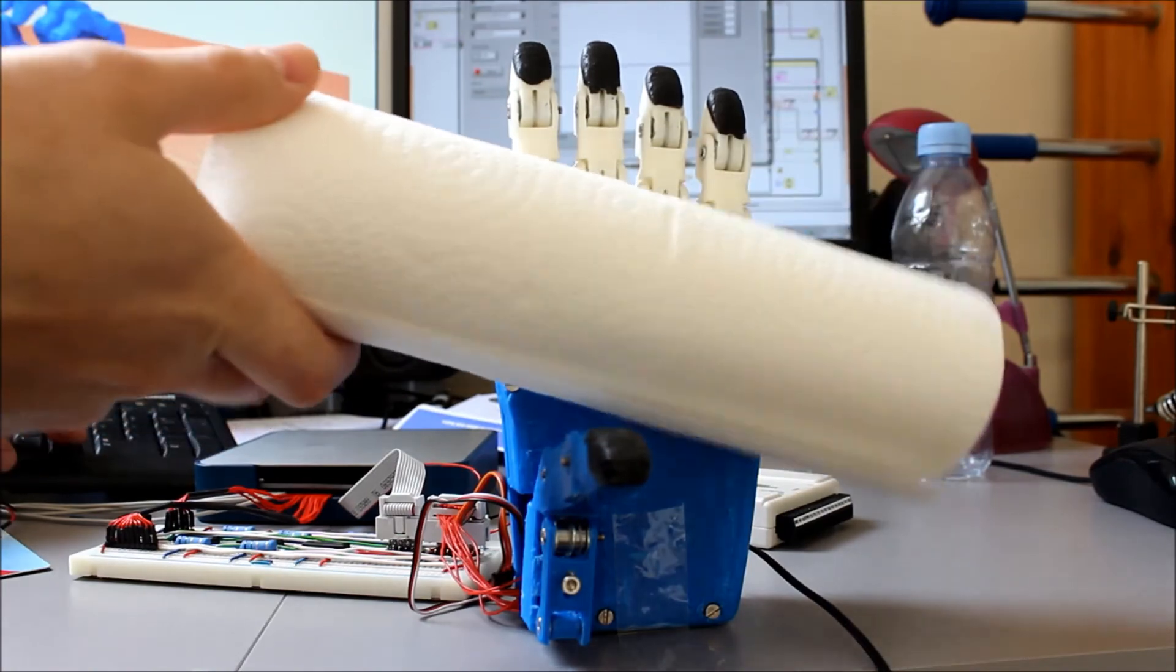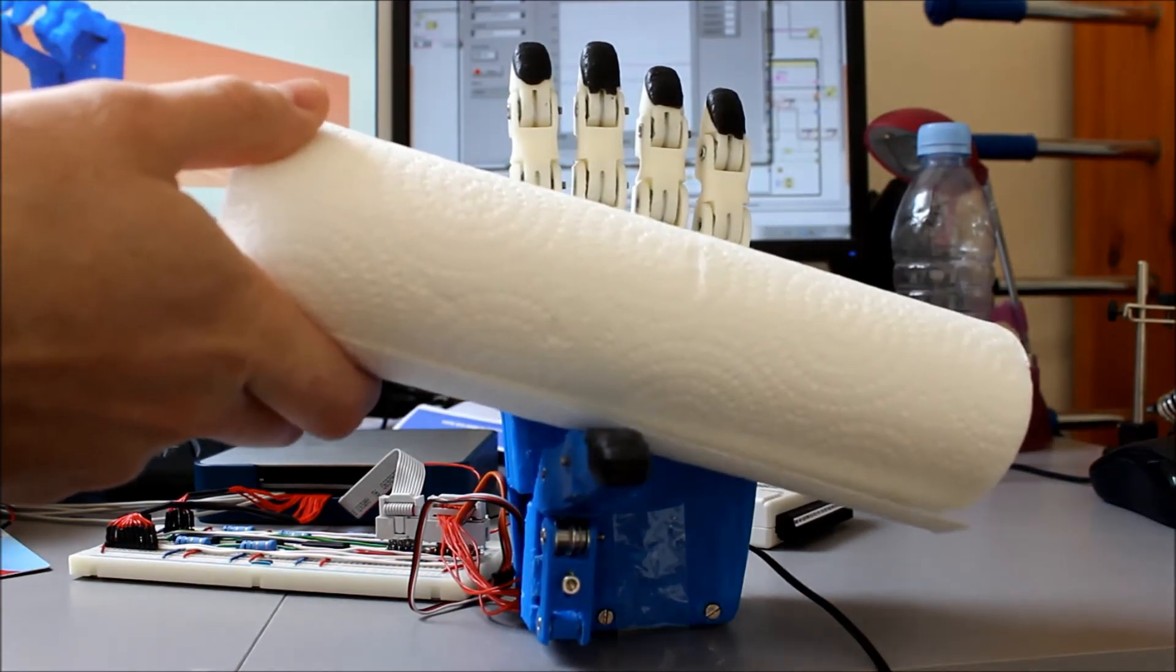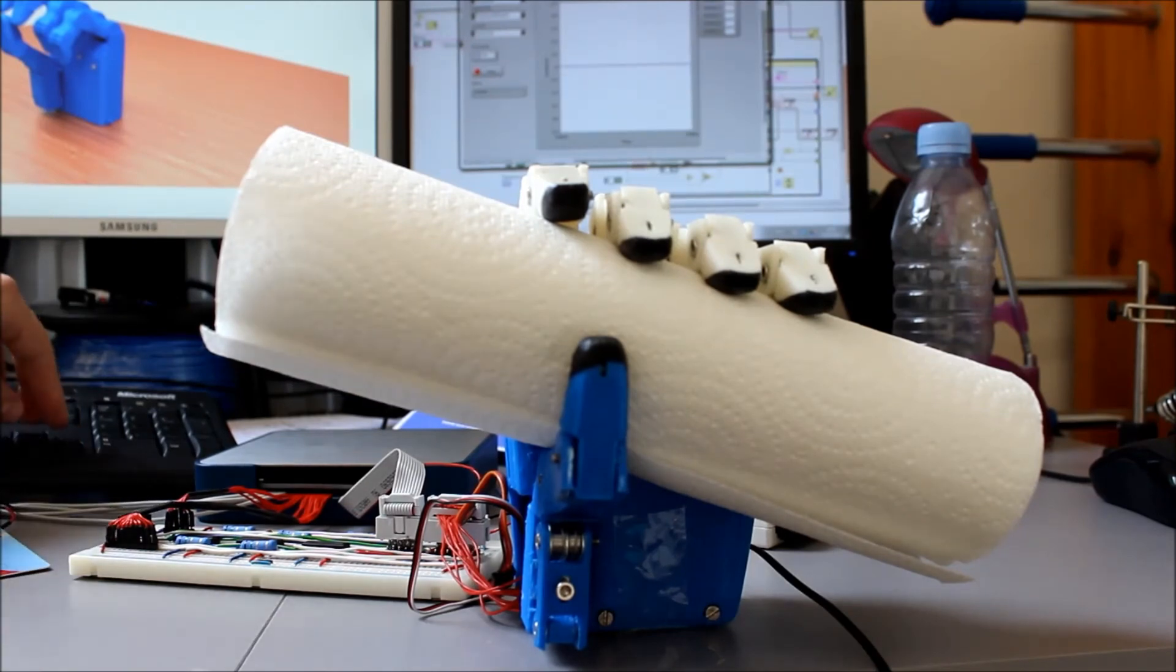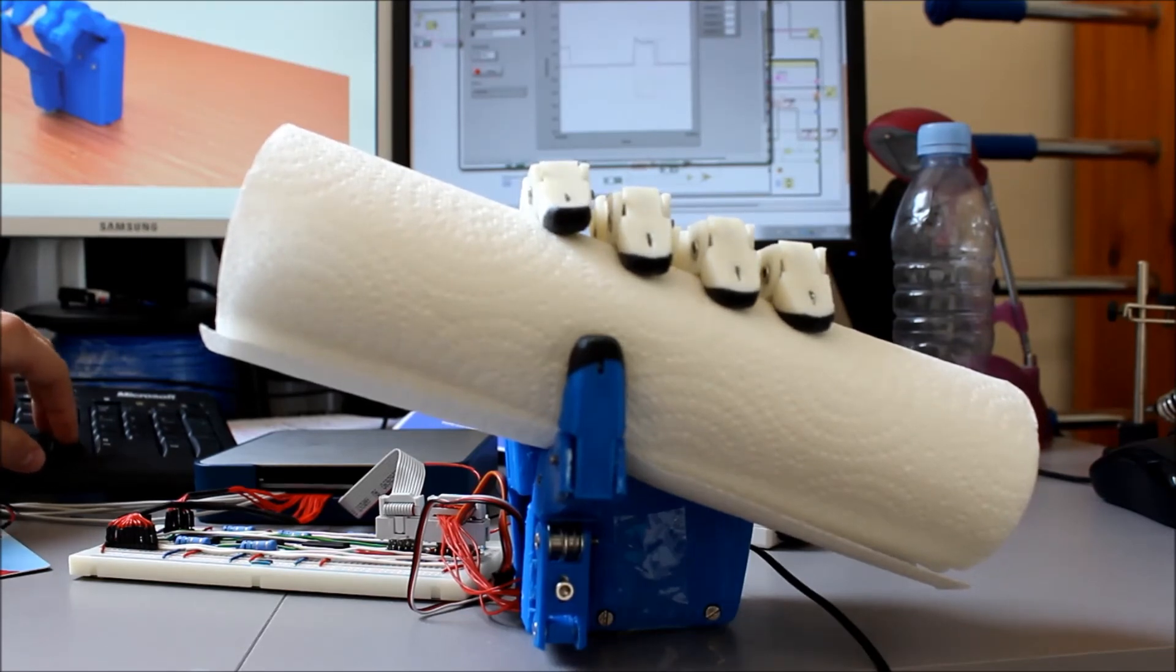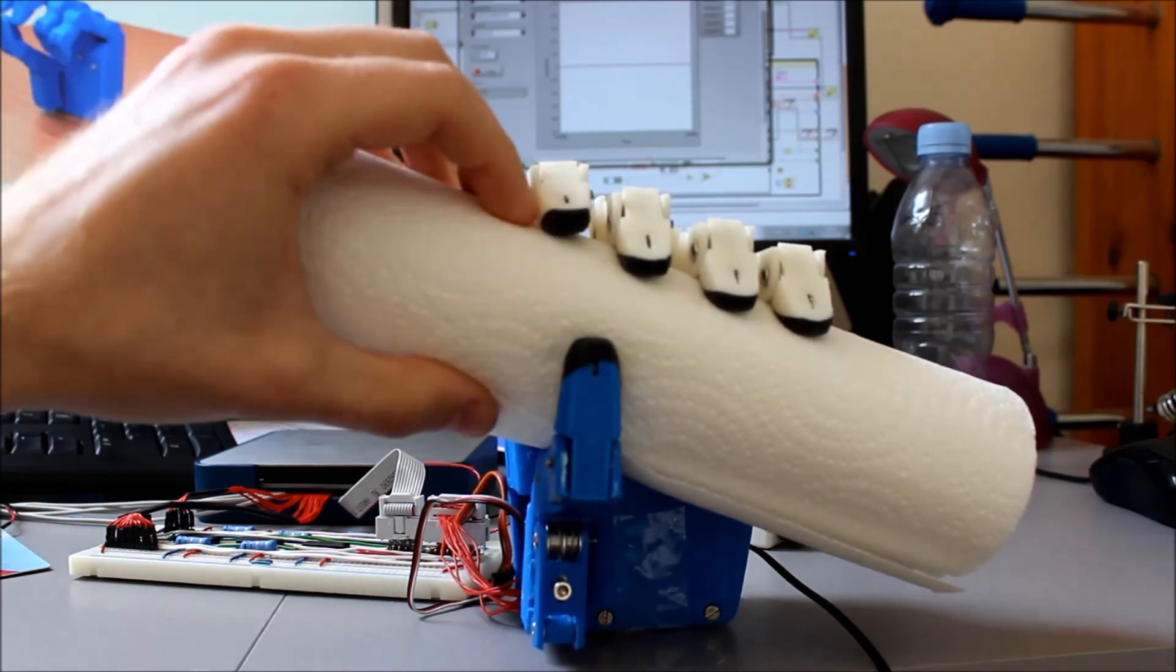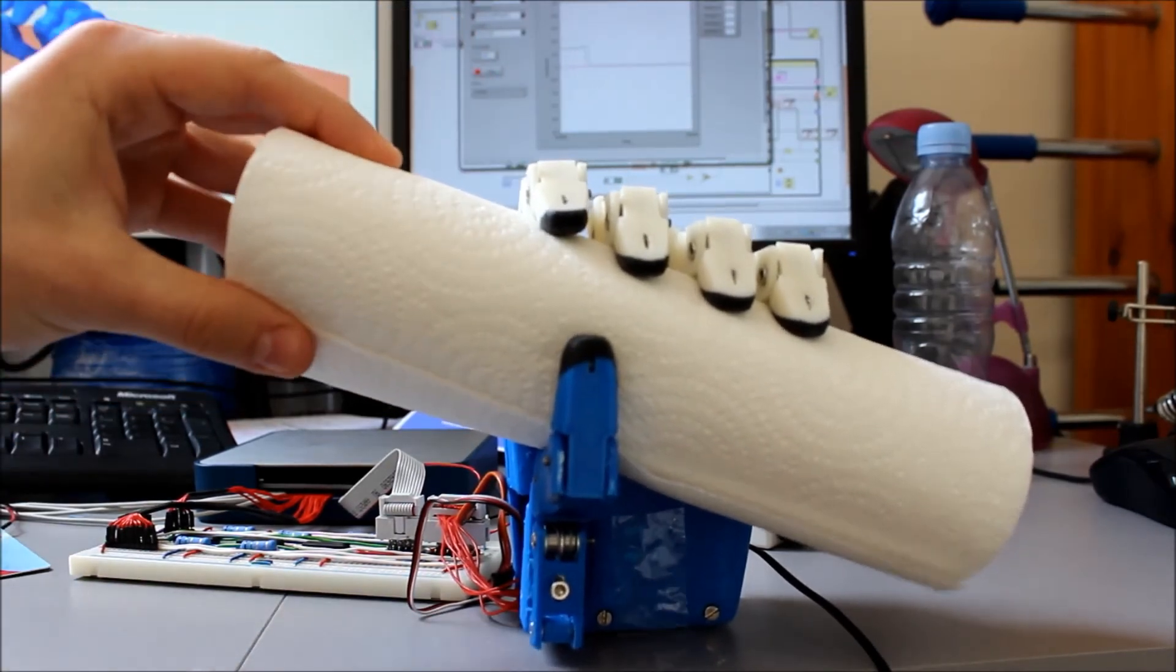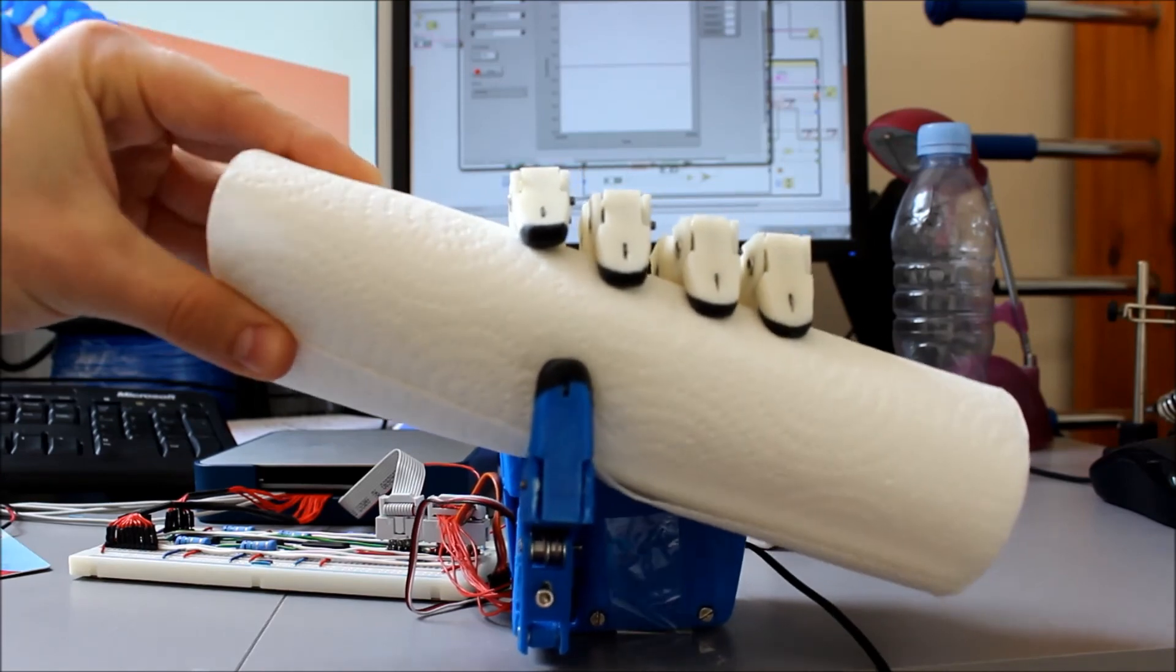And that's the gentle grip. And if I tell it to close again, the grip will get stronger and stronger. So you can see it kind of starts to strain but it crushes the paper towel a little bit. And it gets a very firm grip that's not going to get dislodged easily.